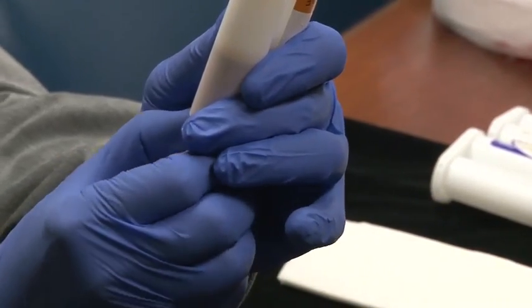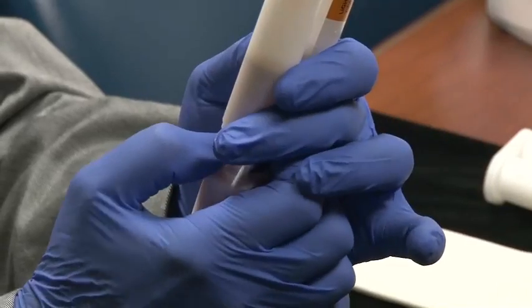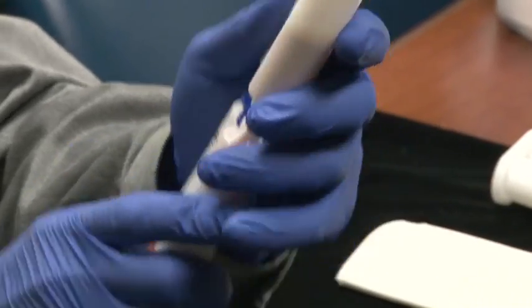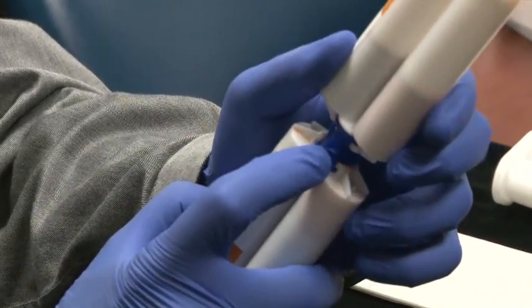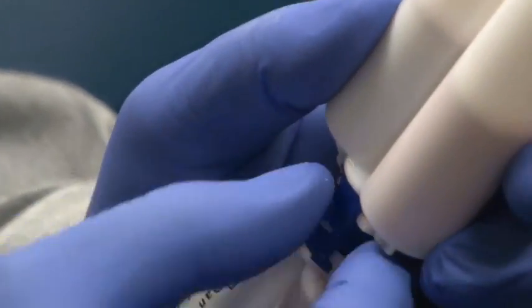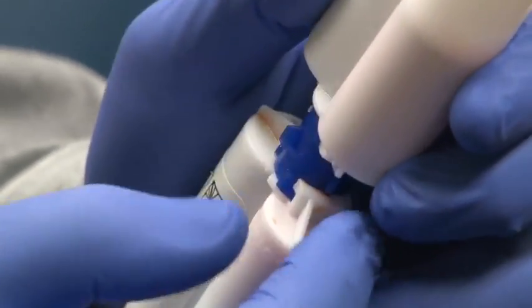And now we take the little tabs that are on the Lock and Reload and we just turn it. It just twists in the direction of the arrow. So that little arrow that was right here, zoom in again on that, if you would. That's the direction that I turned it. So that locks it all together.